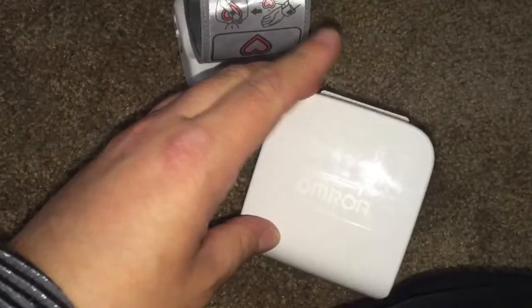Don't let your toddler play with them and throw them! I'm doing this one-handed — real life, unprofessional videos here. I'm going to put the camera down for just a second so I can put the RelyOn on my left wrist accurately.